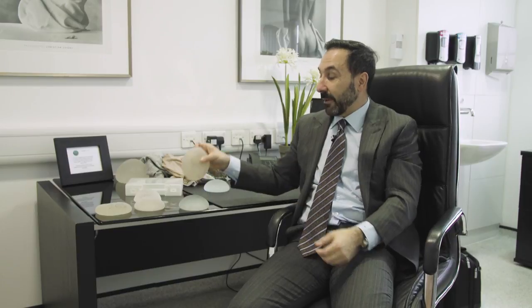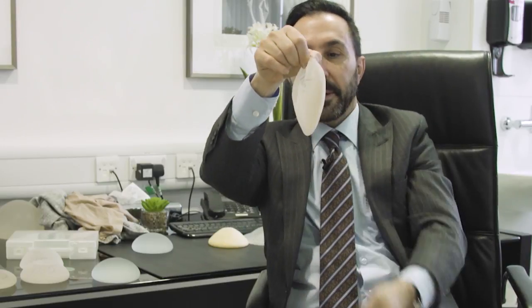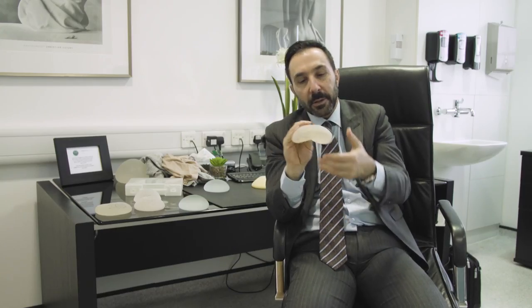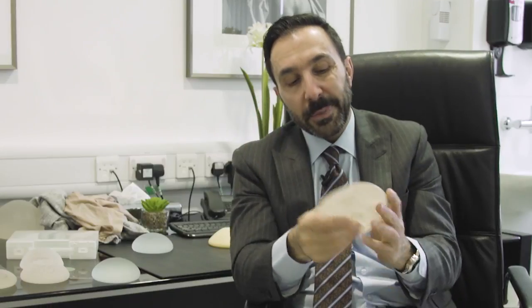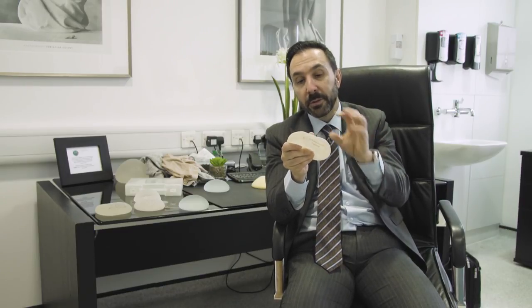Now if I do the same for the teardrop one — if I turn it around and rotate it, it's got an upside-down look to it; it doesn't fall into place like the round one does. If you have rotation of a teardrop implant you can get an out-of-shape breast, and in theory it has happened to me on two or three occasions over the years. It's not something that's easily rectifiable — you sometimes require another operation to re-rotate the implant back to what it should look like. There is always a potential worry of rotation with any teardrop implant, despite the fact that we make a very precise pocket. So that's something patients need to bear in mind before they choose a teardrop implant.